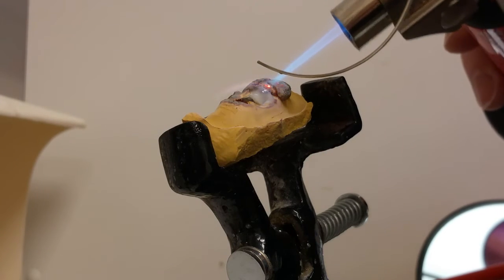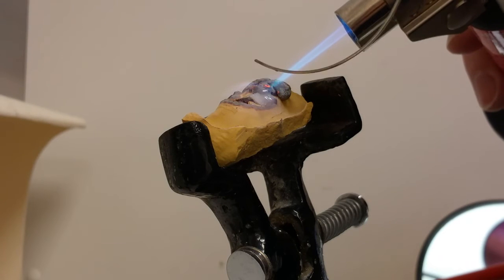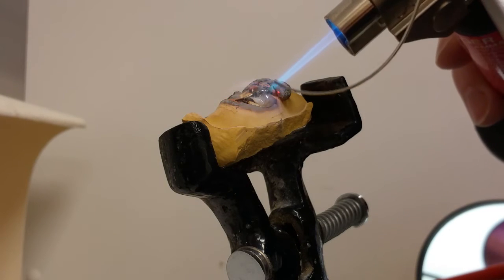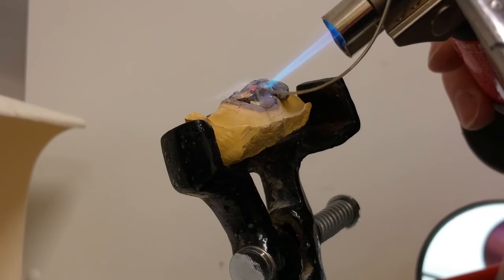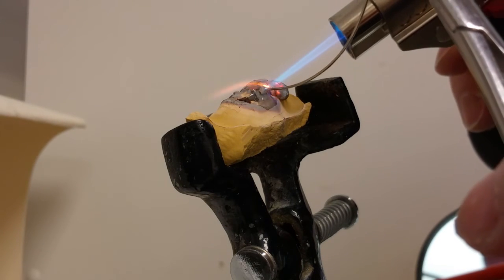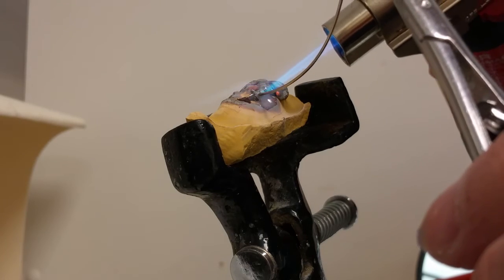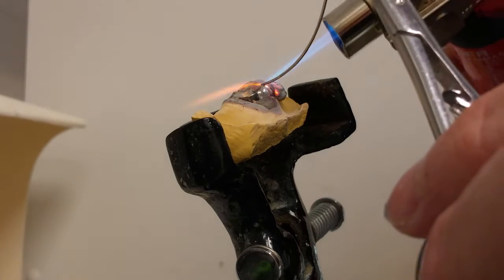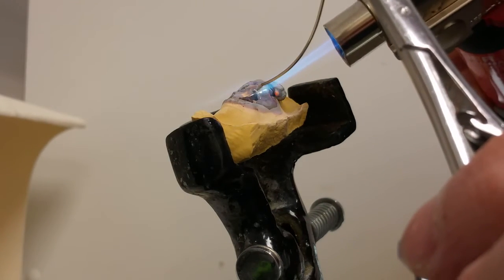Again, just heating, moving the flame around. I wish you could see it from my view. I'm really moving that tip. Everywhere I want the solder to go is where I move the flame tip around.